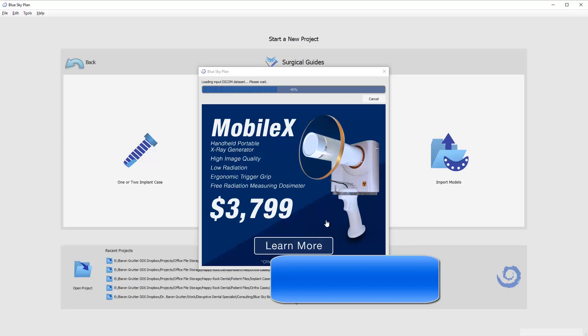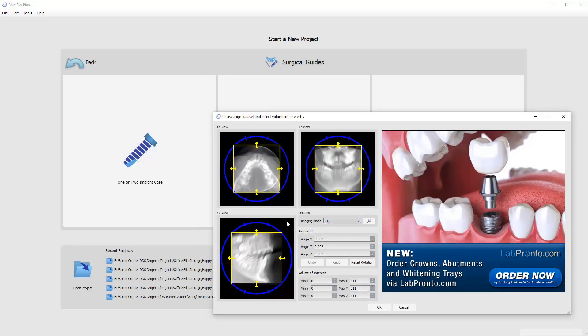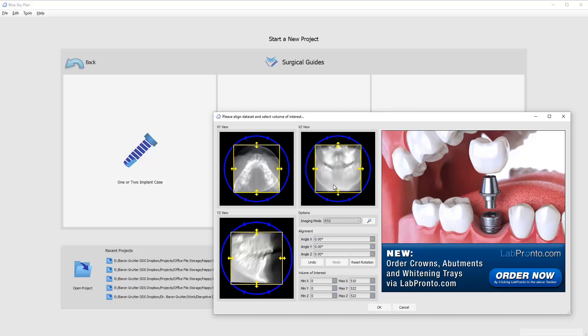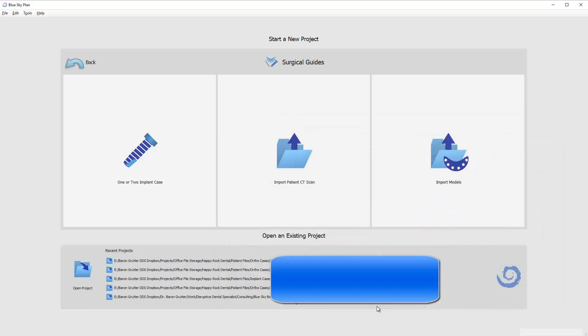I've found the file and clicked on the folder that contains the CT scan. Here's his scan. At the very beginning, we're going to have the option to orient the scan. This helps us in case the patient's head was turned to the left or right or their chin was up or down. You'll notice that it is an open bite scan, which is what we normally do because of the bite stick. I prefer open because it's going to allow us to align the digital model, the STL model of the patient's mouth a little better. So it doesn't have to be perfect here, but try to get it fairly aligned.